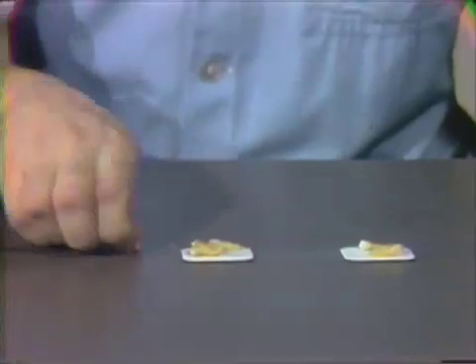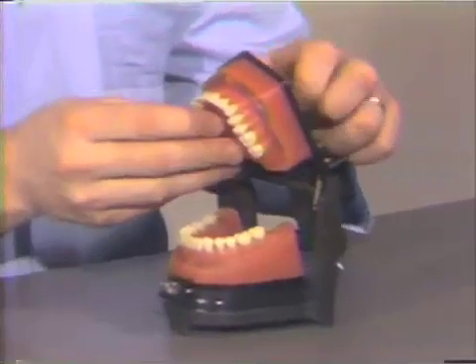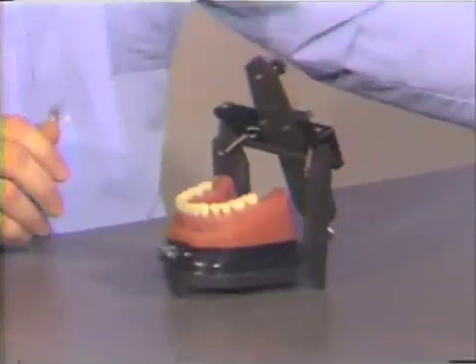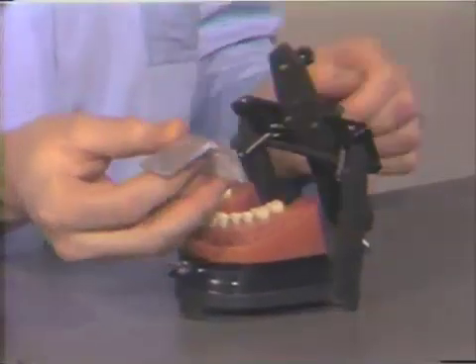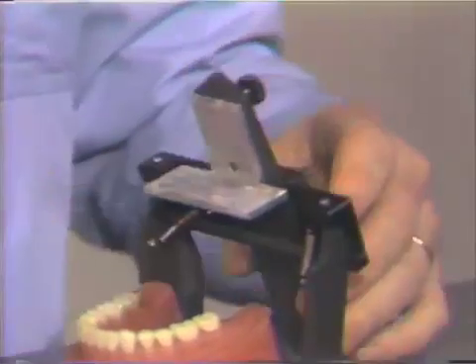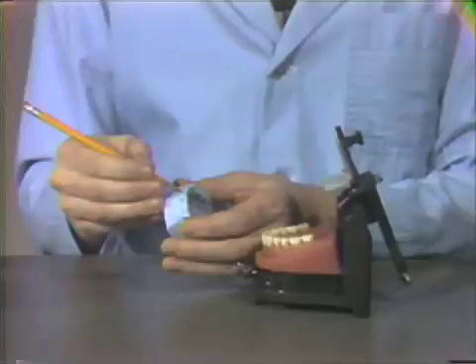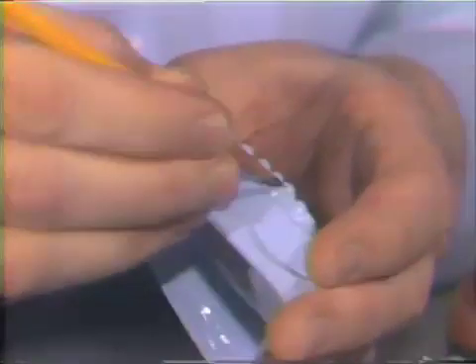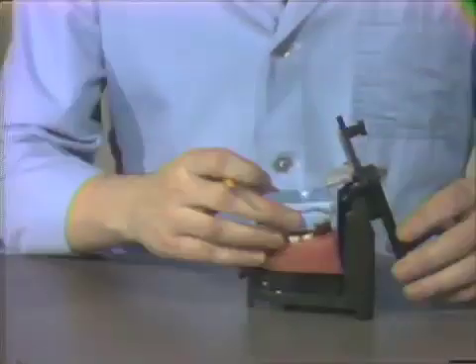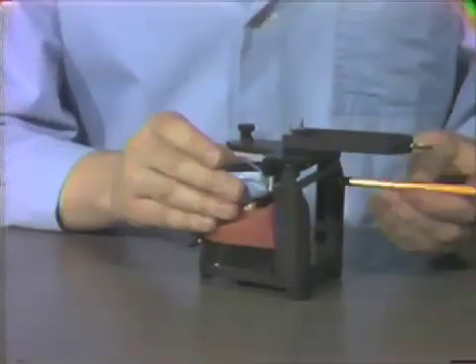The remaining teeth — the mandibular teeth — you will then take an instrument in your hands according to the instructions in your handout. Now let's take your typodont and remove the maxillary arch, and put this in your drawer, place this aside. We'll take the typodont mount and place this on your typodont in place of the maxillary arch. We'll take our blue articulator and mark those teeth that you're going to ultimately remove and replace with natural teeth. Place it in position on the typodont in its normal position, and mark through the holes on the typodont mount.